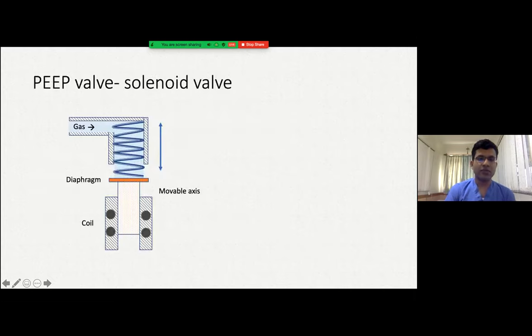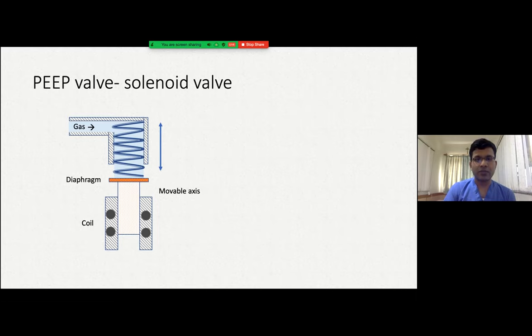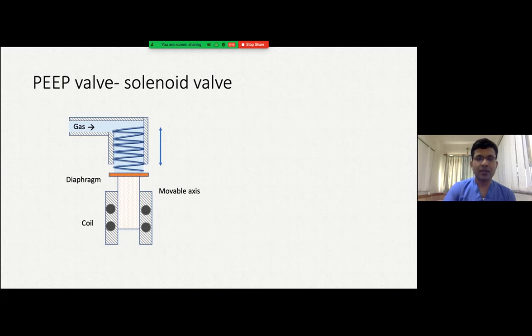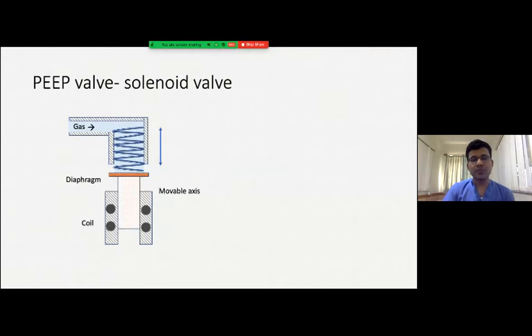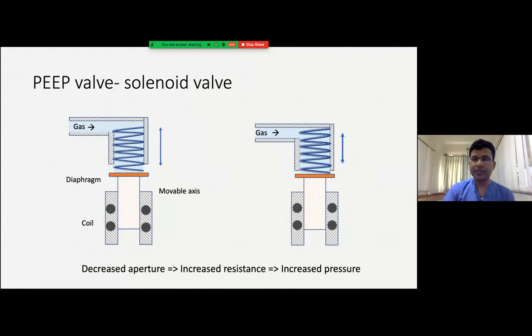This is the solenoid valve, and this is the valve assembly, which is regulated by the software of the computer. The gas enters the valve assembly through the coil spring and leaves from the diaphragm. When we want to increase pressure and give a command, the spring compresses and the orifice from which the gas exits becomes smaller. As the orifice becomes smaller, the resistance to gas flow increases, resulting in increased pressure. These solenoid valves can be very precisely regulated, which is why they are used in all ventilators.